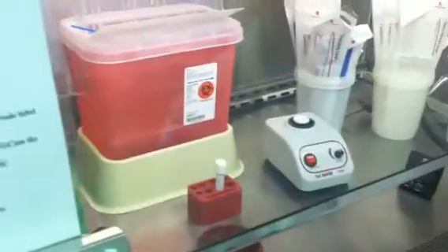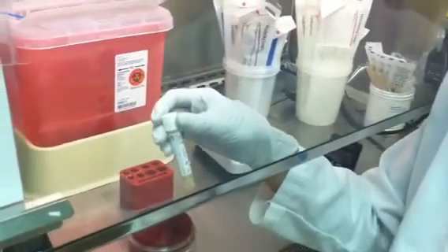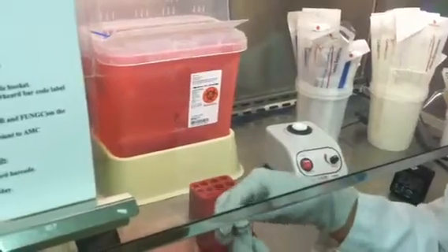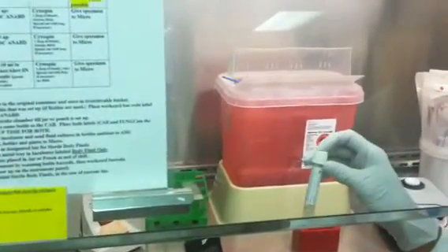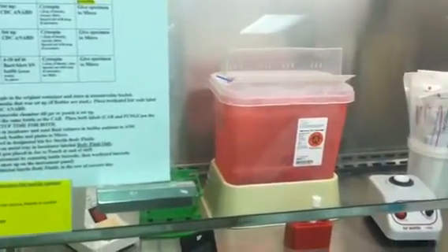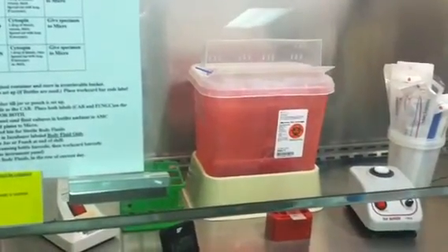One thing to mention is that even though this is a liquid media, you still want to follow the Cytospin rules for fluids, bones, bronchiolavages, etc. Still follow the chart that we have established, because you would not necessarily do a Cytospin gram stain off the sample. This is basically in place of the swab that we would get in the past. So make sure you follow your chart, incubate as normal, and stain your gram stains as normal.